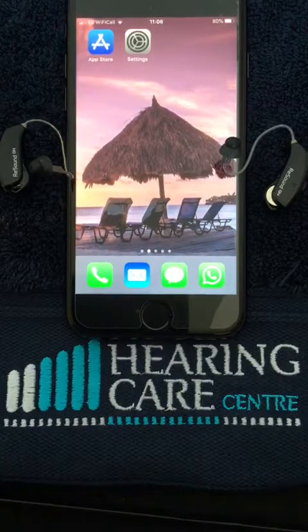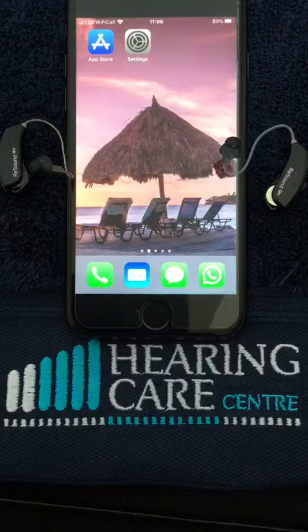Hello, this is a short video to show you how to pair your hearing aids to your iPhone or your iPad. The ReSound hearing aids I'm using here are the Lynx range that came out around 2015, so any hearing aid within the Lynx range from 2015 onwards are compatible with either the iPhone 5 or newer, or the iPad 2 or newer.